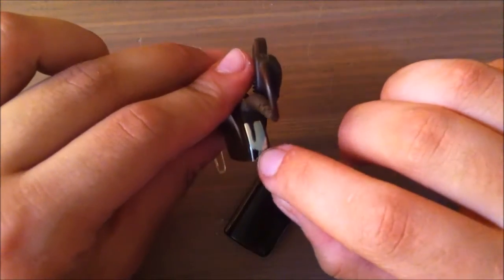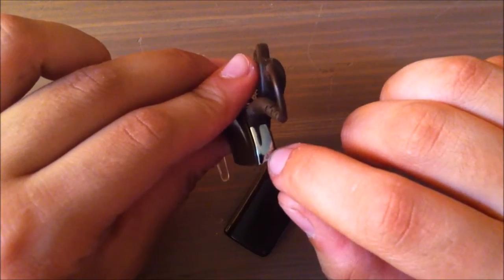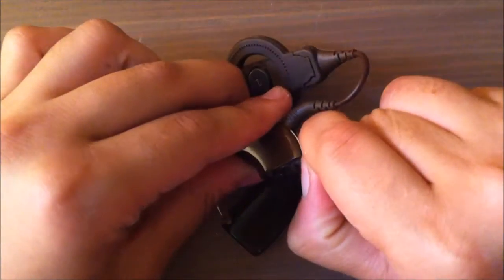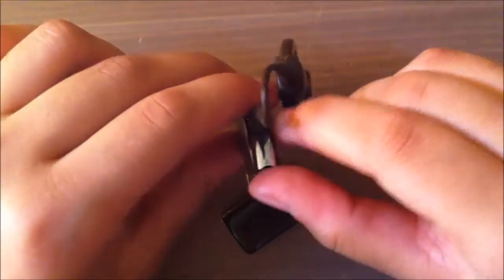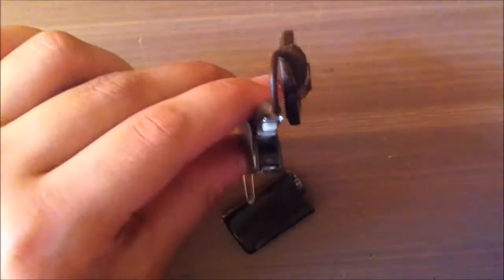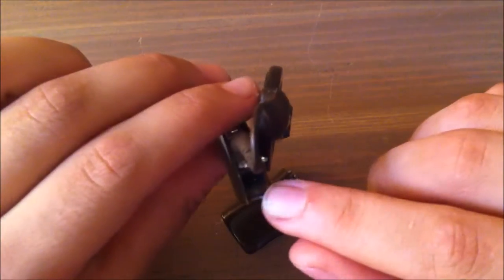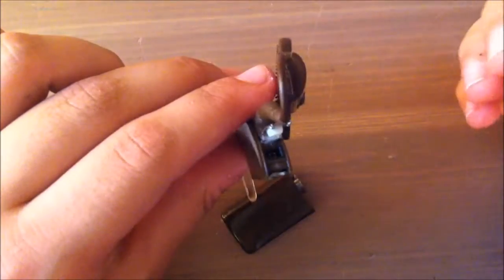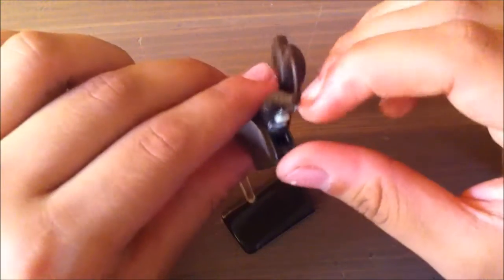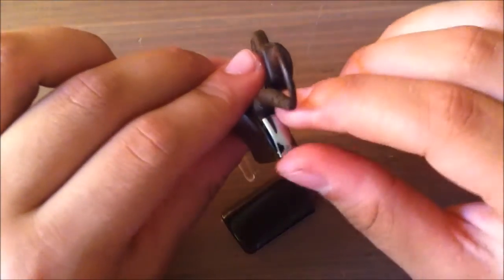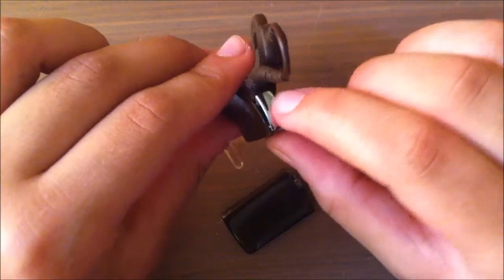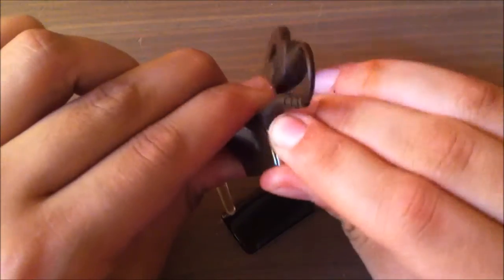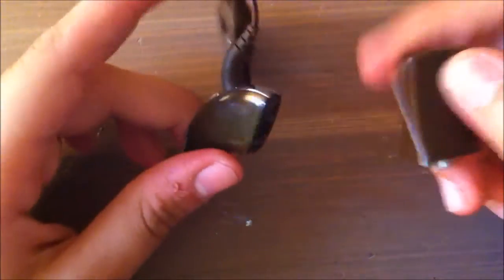You can see a little arrow right there. I never have to use this. The audiologist is the one that always does this. Just take it off and you might have to plug some things in there. The audiologist might plug things in there to program or do whatever. To close it, you just put it back in, basically the same way, just like that.